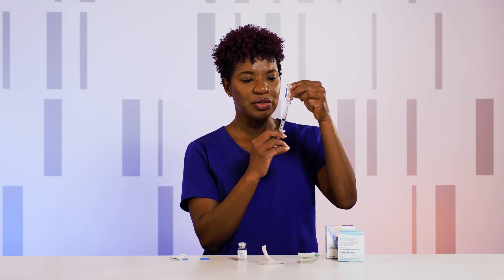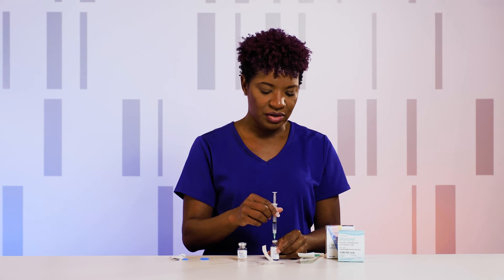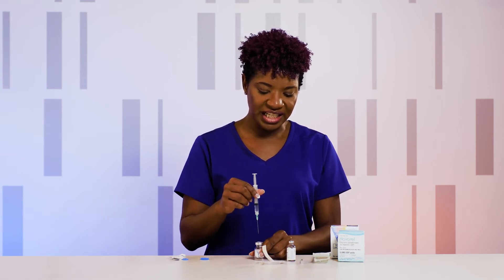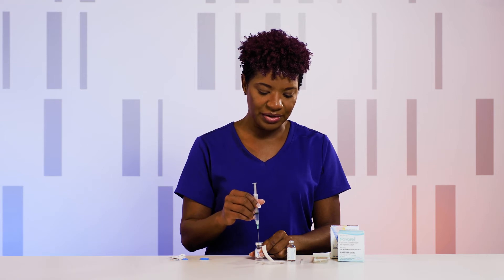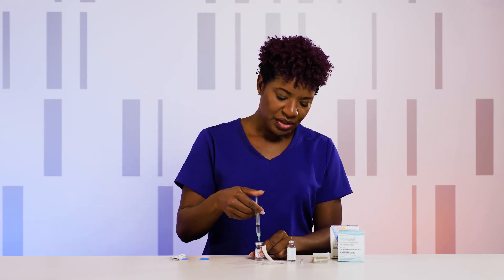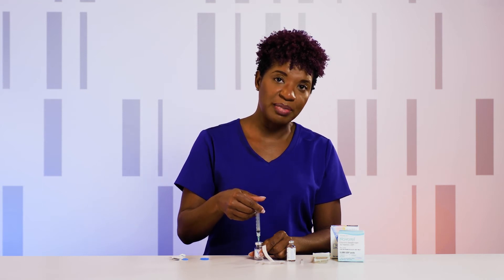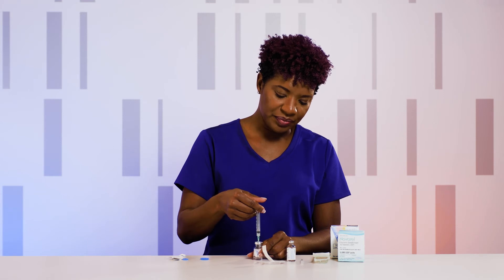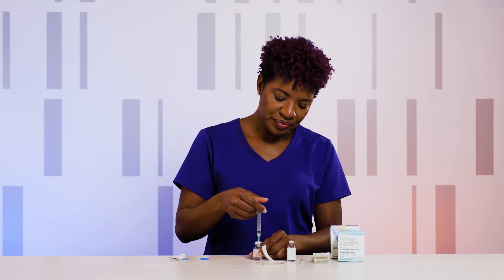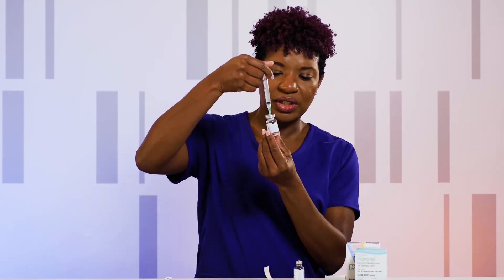Once you have your dosing, go ahead and turn the needle and syringe right side up attached to the vial. Pull your needle out and inject the liquid into your powder, going directly through the center of the stopper. Inject the liquid in slowly to avoid the amount of bubbles that go into the vial. Once your liquid is in, give it a little swirl and make sure that the powder is totally mixed and that there are no particles floating.